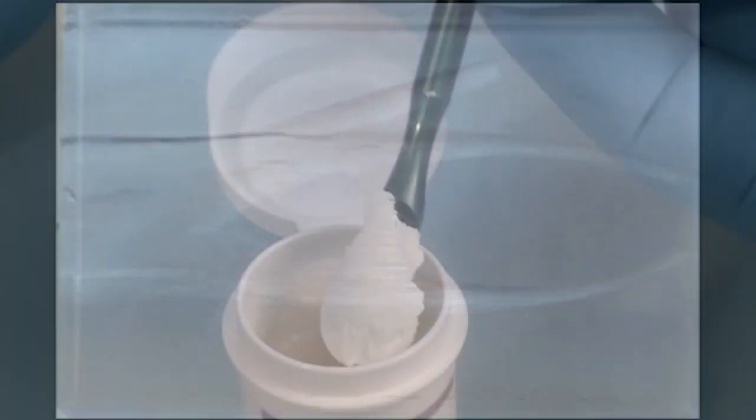We're here to demonstrate how to use MTA flow repair cement. Our model is a simulated root canal with a deviation that occurred during coronal access.